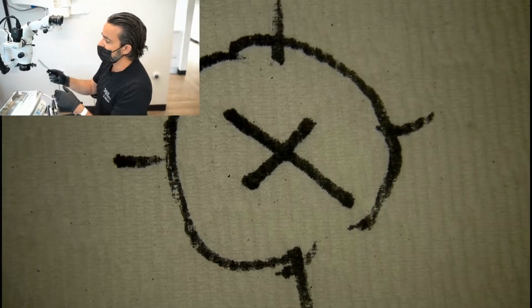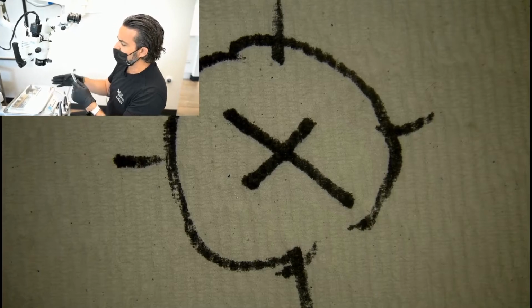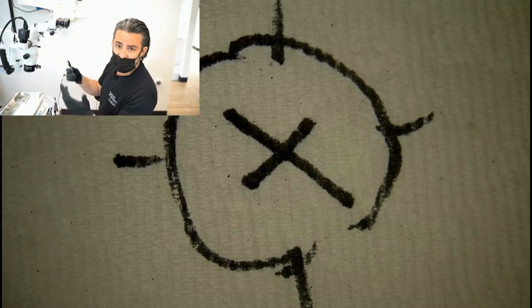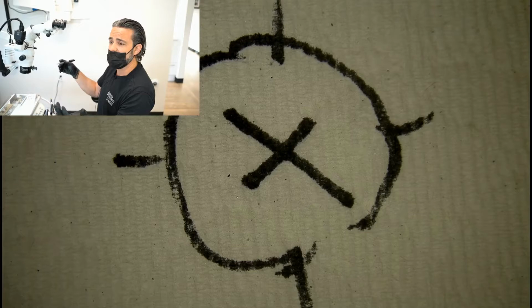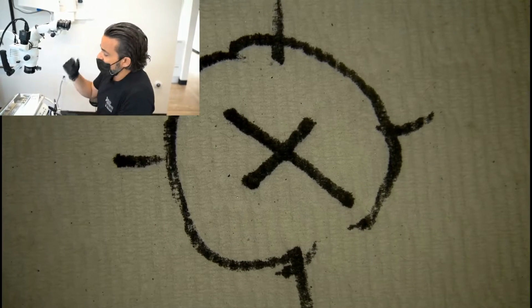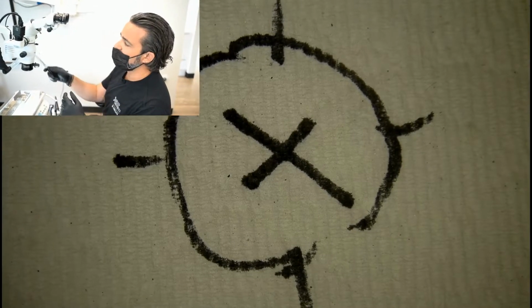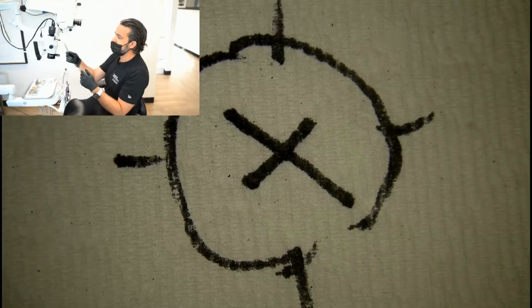And so this is a must-have on any microscope. Must-have. Because what you just observed is not necessarily practical because you're not working on a mannequin and you're not a robot. So I parfocal when I have to, and you do it more for doing things like this when I have a video feed.